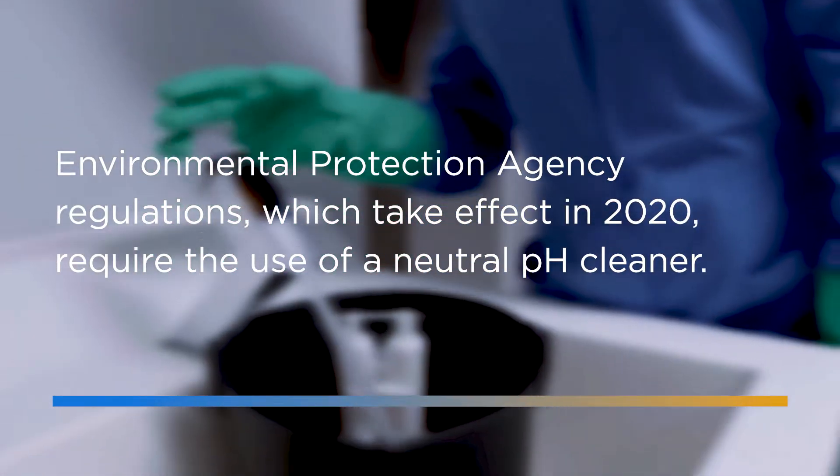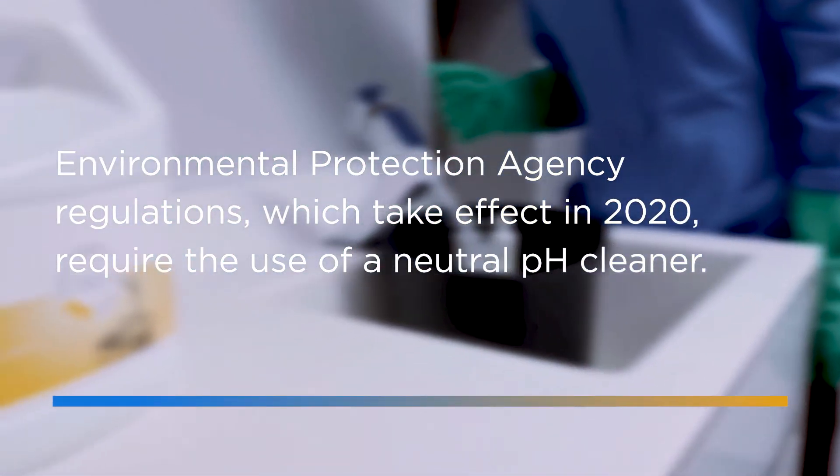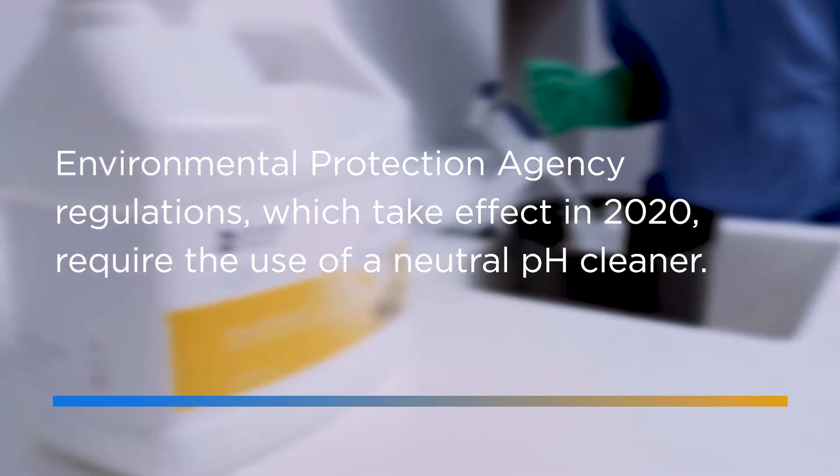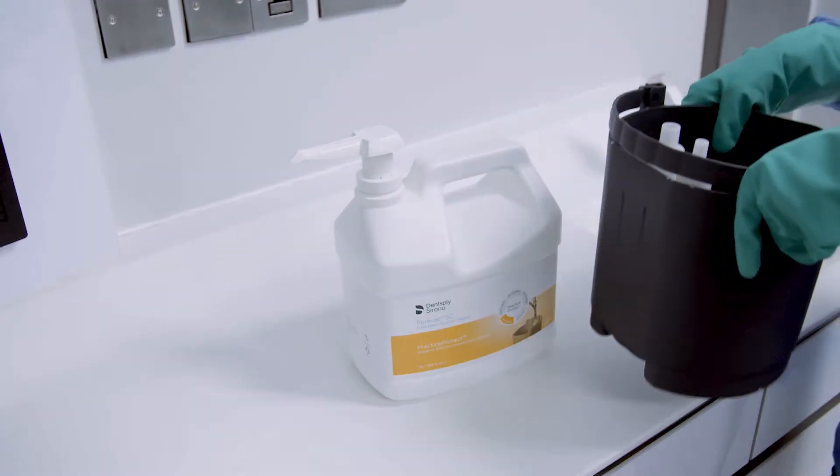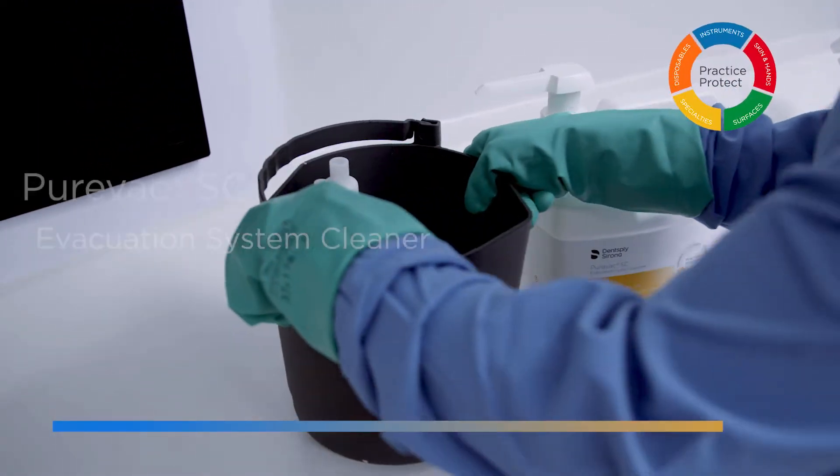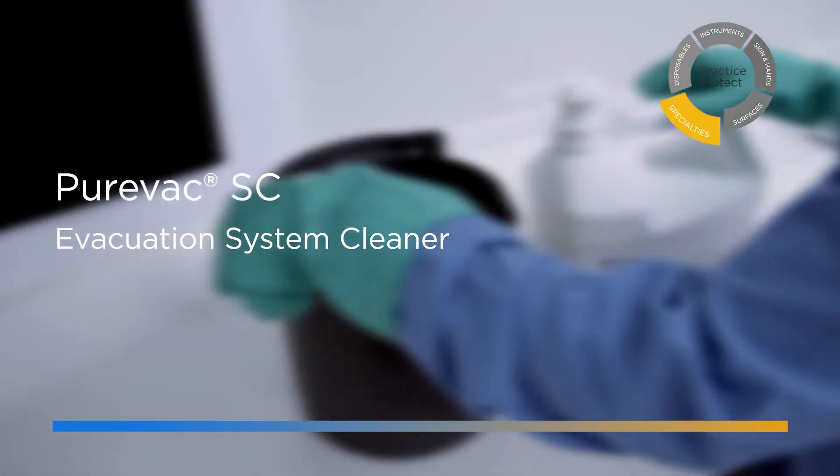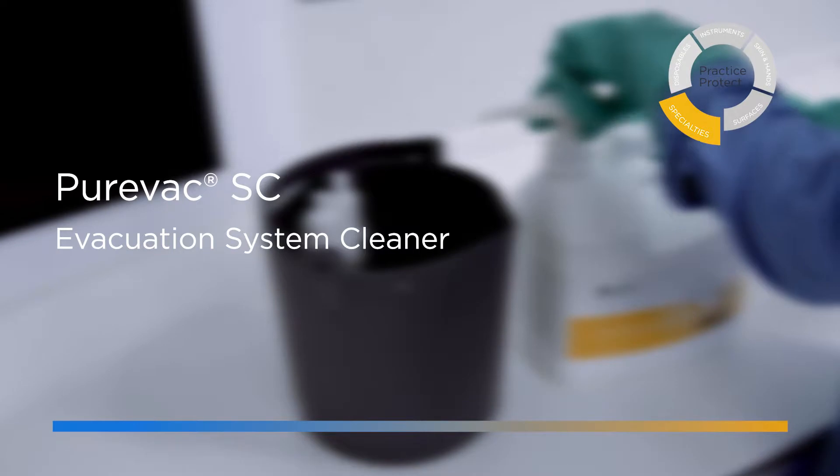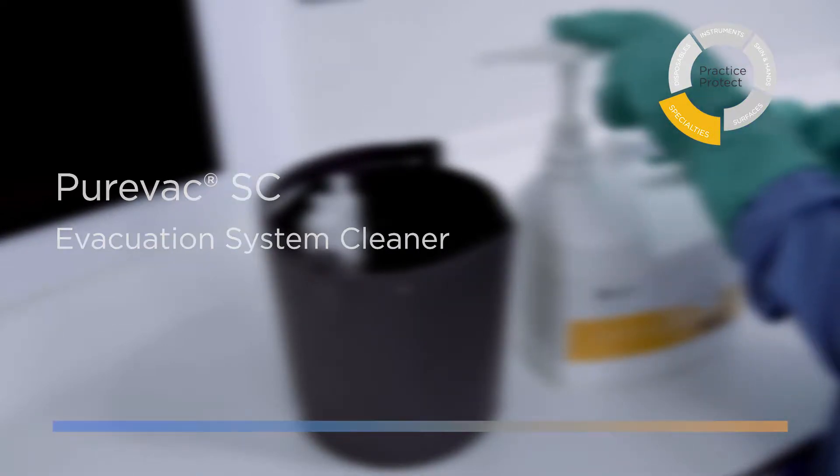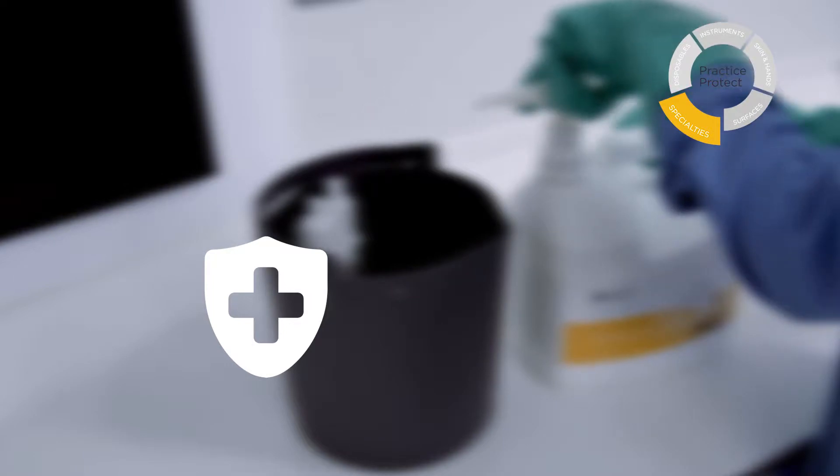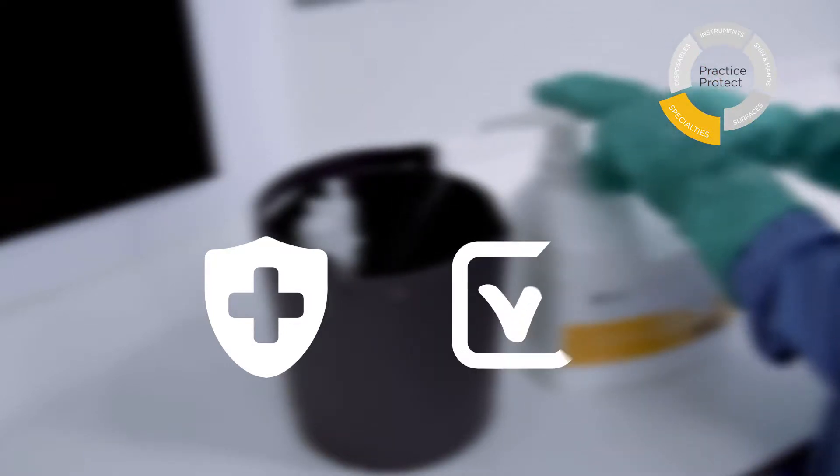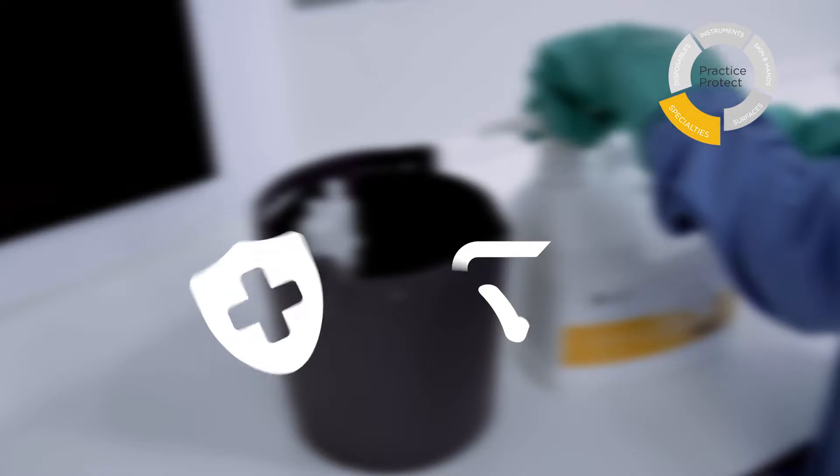Environmental Protection Agency regulations, which take effect in 2020, require the use of a neutral pH cleaner. The PureVac SC Evacuation System Cleaner from Dentsply Sirona features a PureVac SC Evacuation System Cleaner dispenser. The neutral pH PureVac SC Low Foaming Cleanser is designed for use with amalgam separators and meets EPA regulations.